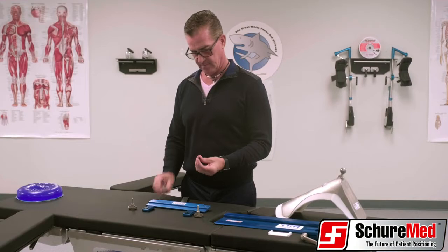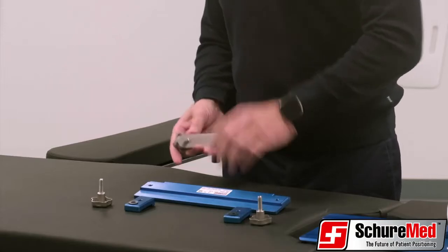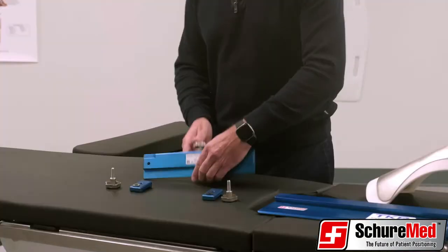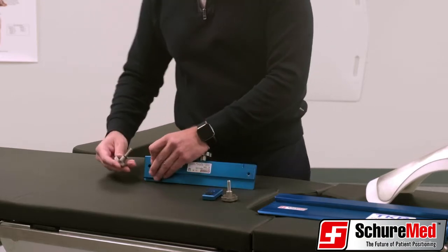To assemble the TKR, first attach the stainless steel mounting bar to the cross-support bar with the star knob and washer. Next, attach the two blue base plate clamps to the cross-support bar, again using star knobs with washers.